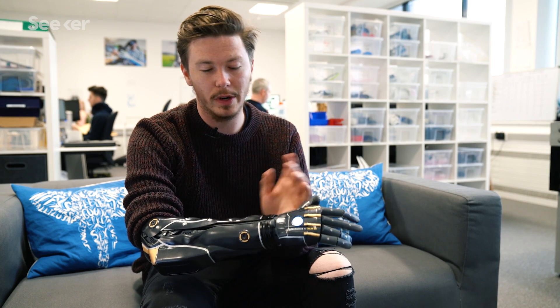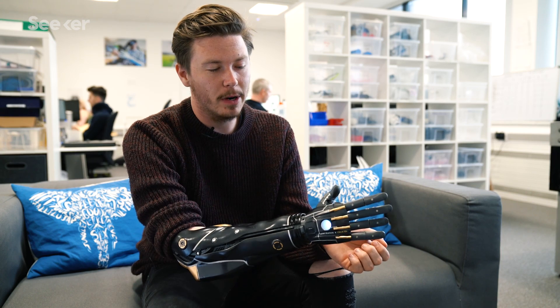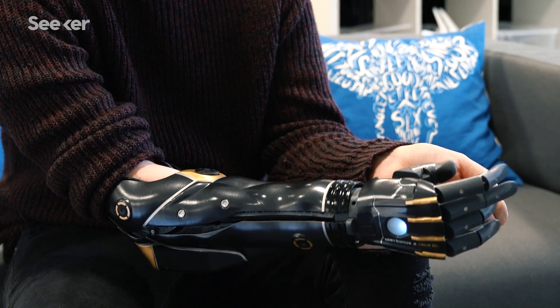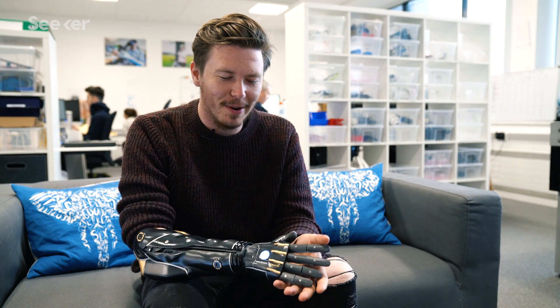These are the Deus Ex panels, which look really nice. With this arm I'm able to open and close — I tense my muscles. I can change the thumb, and if I press the middle button it flashes. People are so distracted by the arm opening and closing, they're like, 'That's mad!' I just love the reactions.